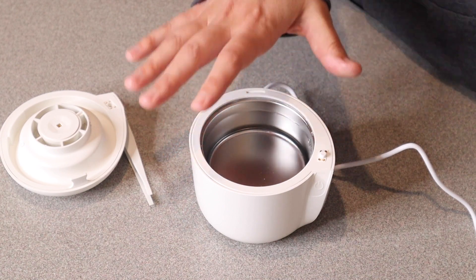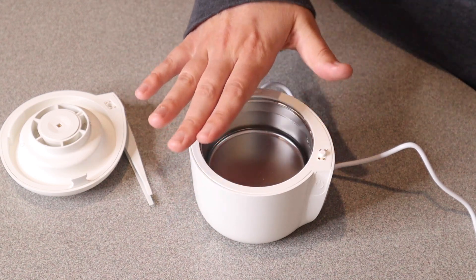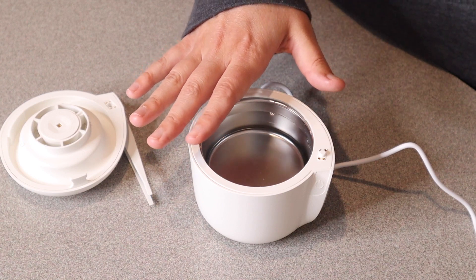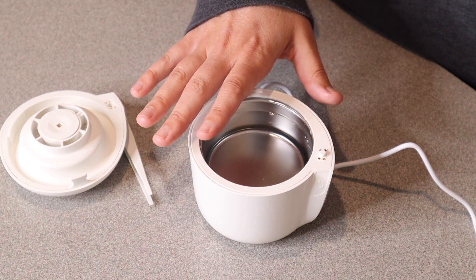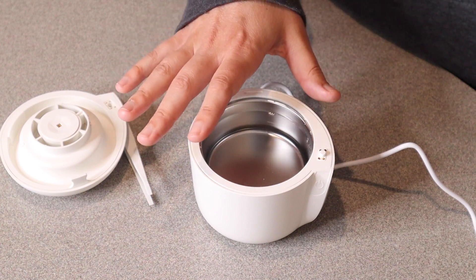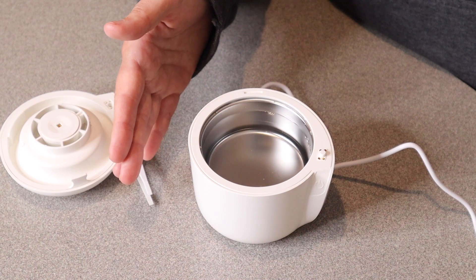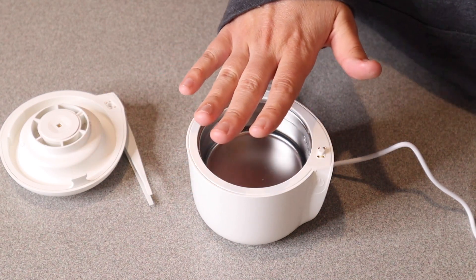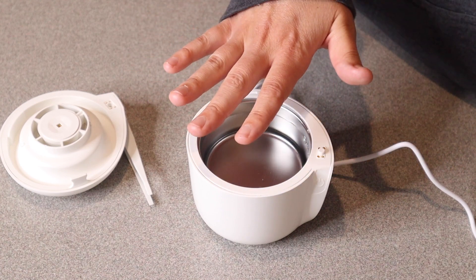You can even use it for not only home use but traveling as well. The ultrasonic purification process does not damage any of the braces or pieces, which is great. It does provide 360-degree penetration into the different crevices and removes small stains just by easily vibrating them out. I absolutely love that there's one step from wash to dry because it's all in the same container — all you're going to do is remove the water before you start the drying process.